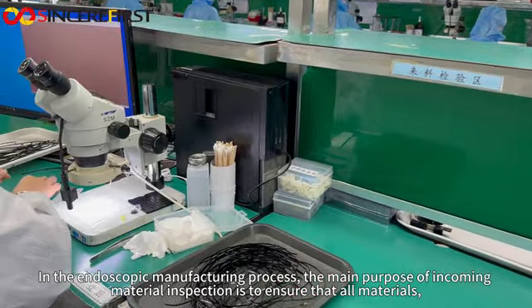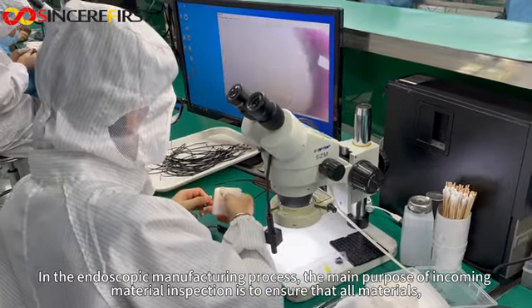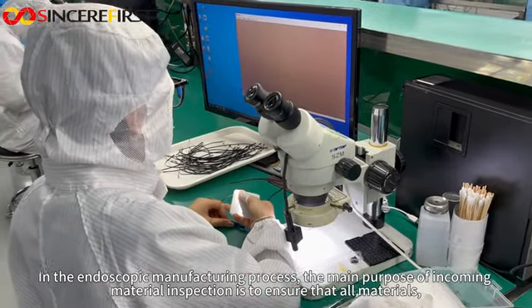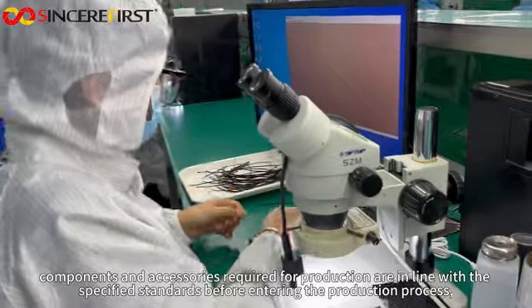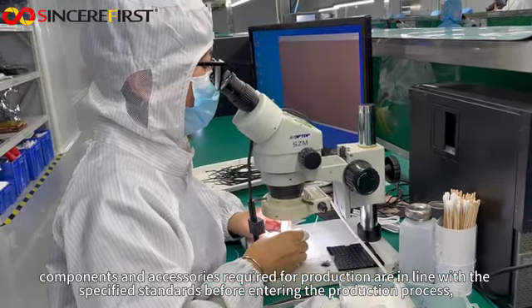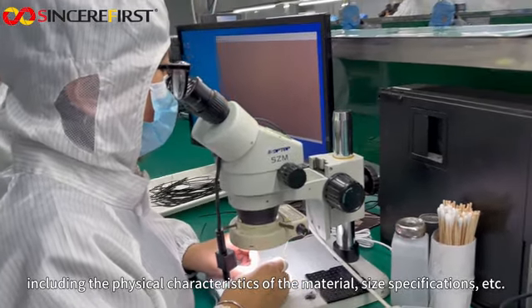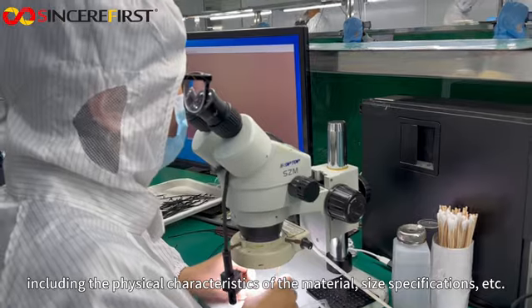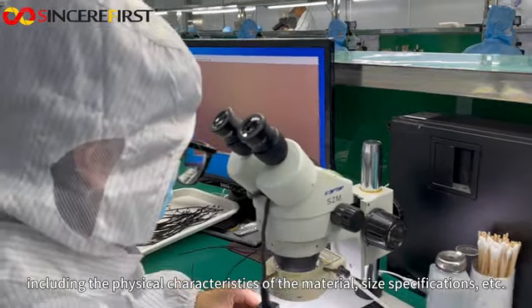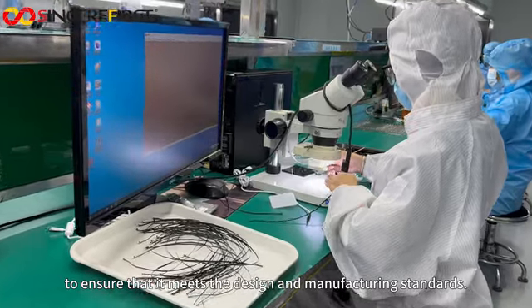In the endoscopic manufacturing process, the main purpose of incoming material inspection is to ensure that all materials, components, and accessories required for production are in line with the specified standards before entering the production process, including the physical characteristics of the material, size specifications, etc., to ensure that it meets the design and manufacturing standards.